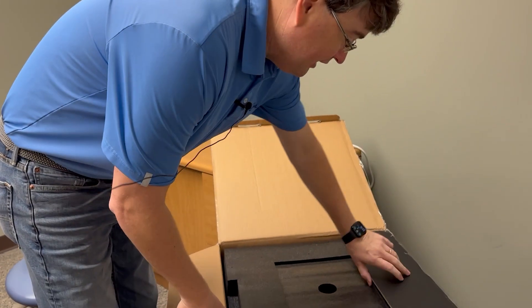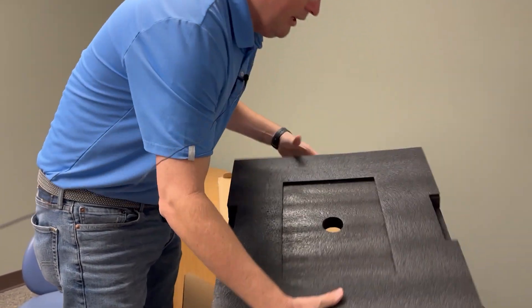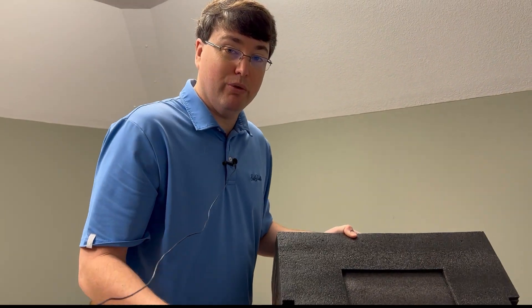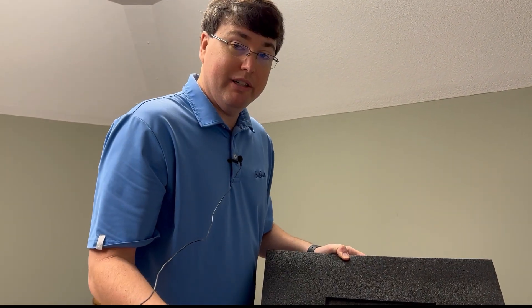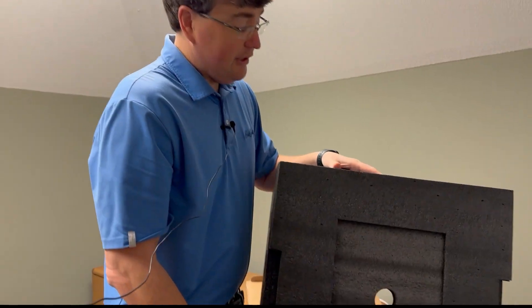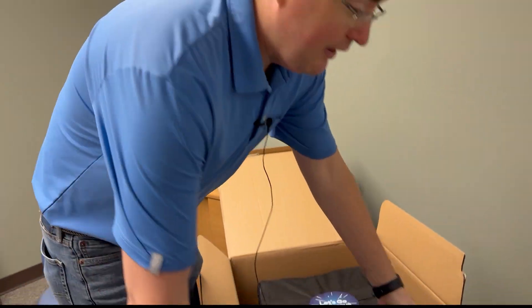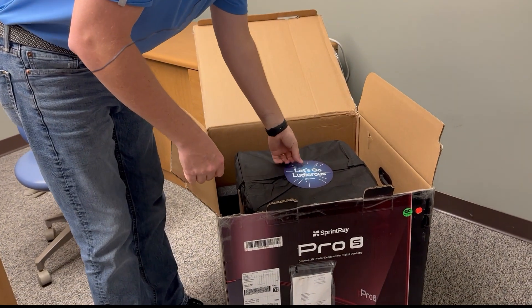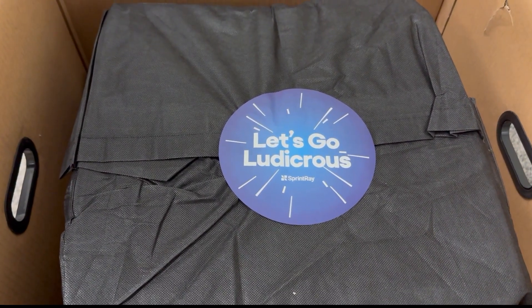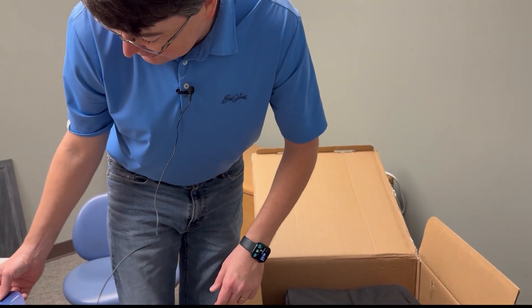Let's get this big top piece off. I've always kept these boxes in a storage unit so if we ever needed to ship it back for support we'd have the box. This stuff fits these printers like nothing else will, so save this. Oh, look at this little sticker — 'Let's Go Ludicrous.' A little Sprint Ray marketing strategy.